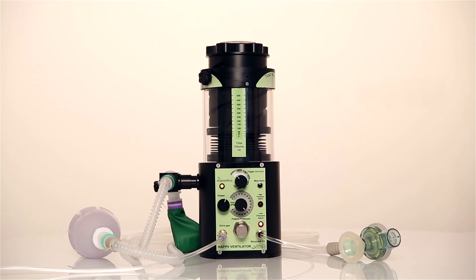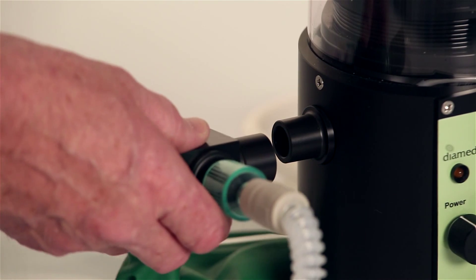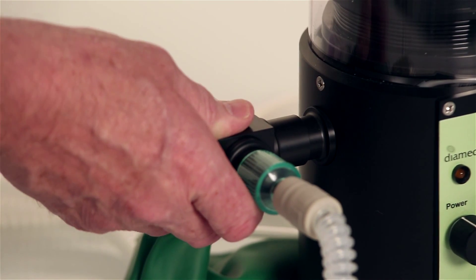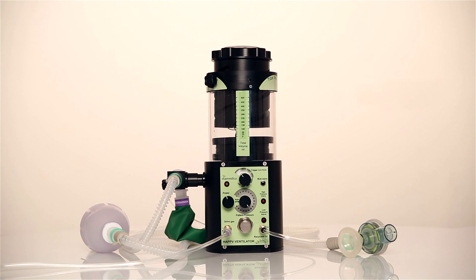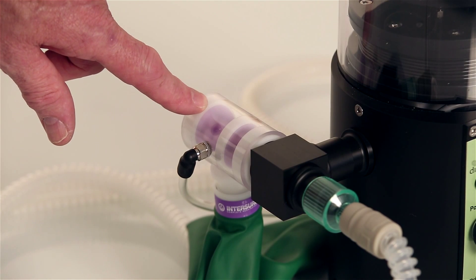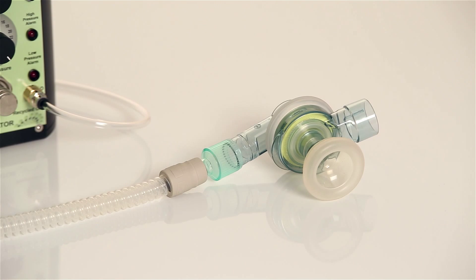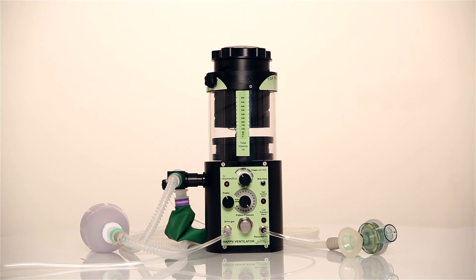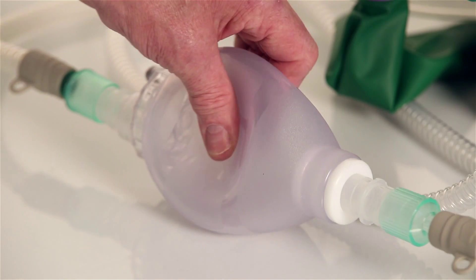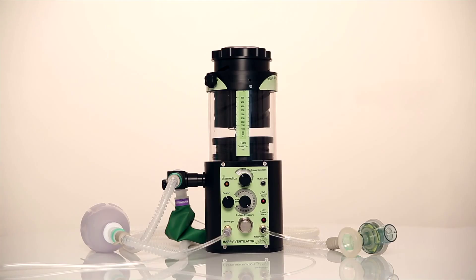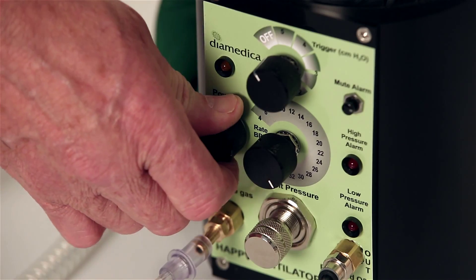If the Helix is to be used as a stand-alone ventilator, then the circuit block needs to be fitted first. The gas flow in the circuit works by entraining room air through the one-way valve at the back of the reservoir block. This is either controlled by the patient's own inspiratory effort when spontaneously breathing, by compression of the self-inflating bag in the circuit during manually assisted ventilation, or through turning on the ventilator.